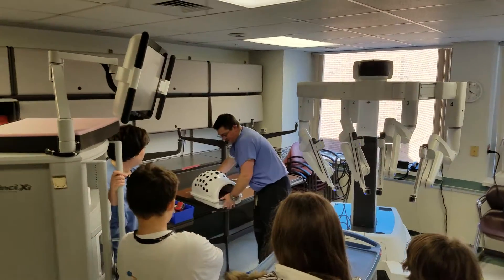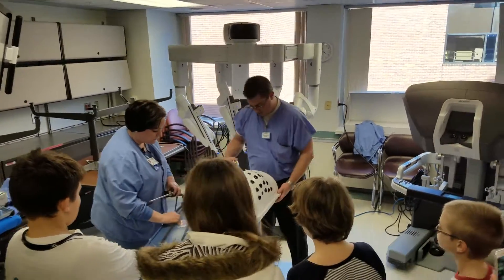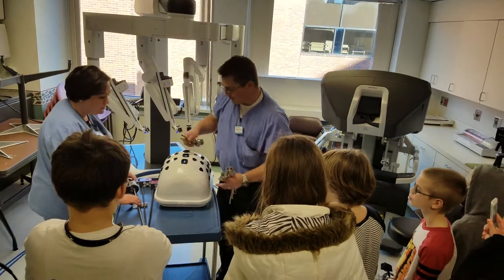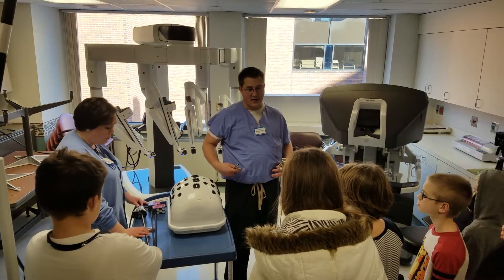On the table, this patient really needs to be fixed because it's coming — it's in two pieces. So what we do is we have a patient on the table. This is me and my belly on the table, and I have some stuff in my belly I need fixed, right?